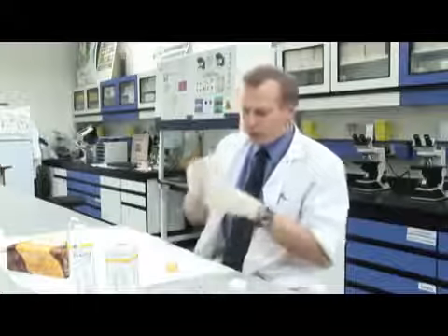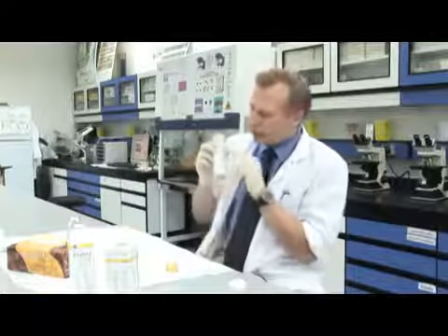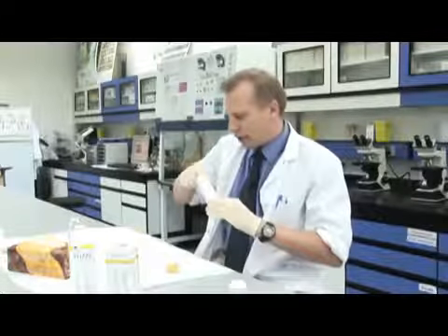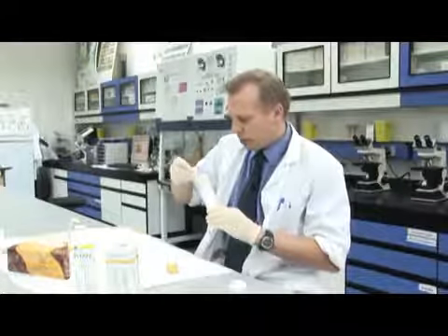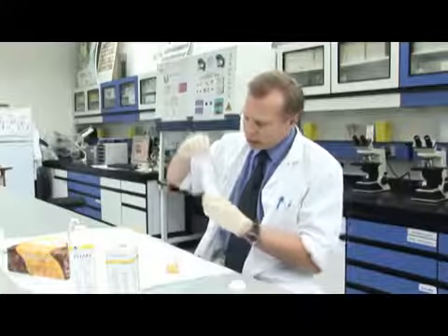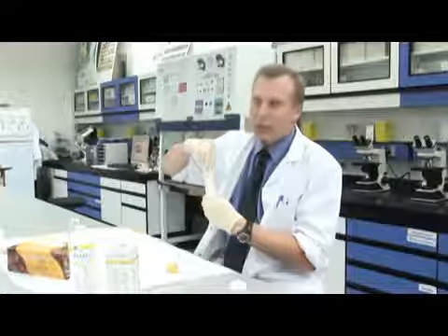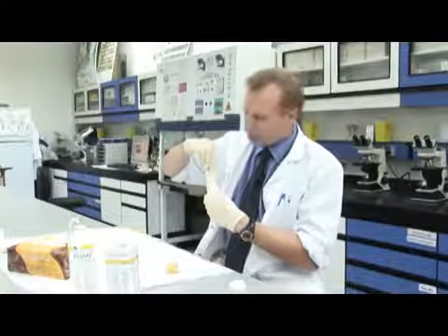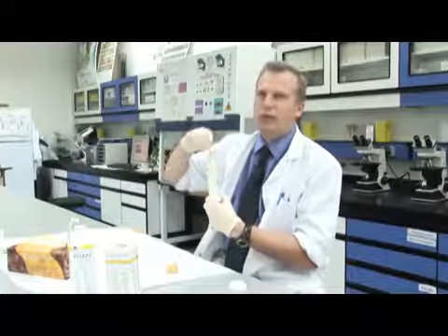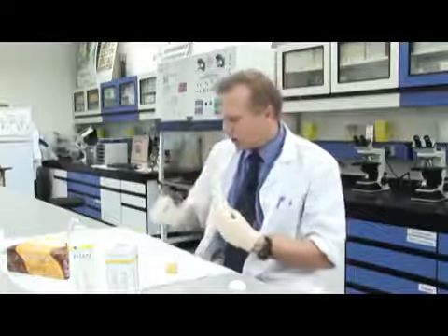And if we look on the side of the vial or the container that these strips come in, it gives us a reference colour range. So normally if we take a non-reacted strip, it looks like this, and then the colour will change and we hold it this way against the different colours. When we get a colour match, we can say if there's been a positive result, and it also gives us rough ranges or concentrations for the different chemicals found in urine, so we can make a diagnosis.